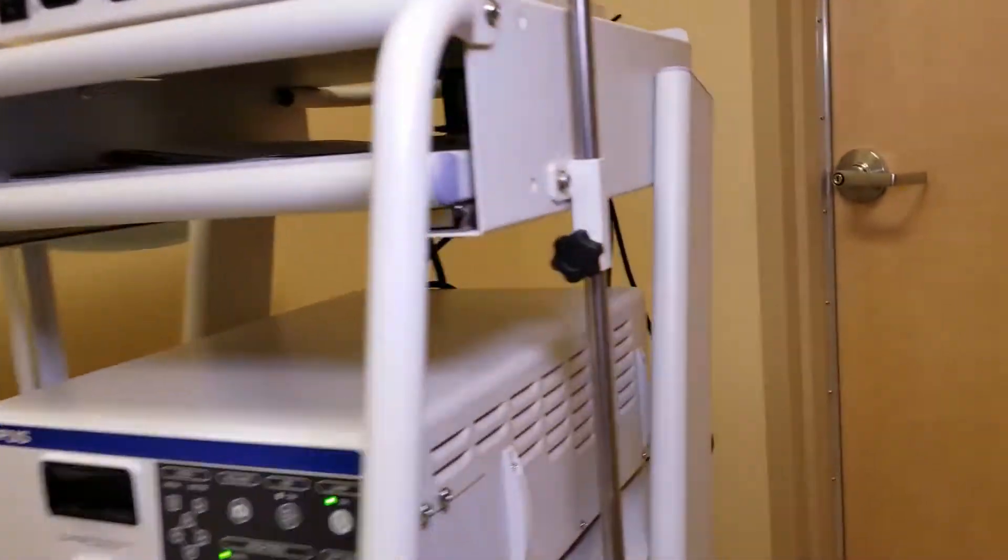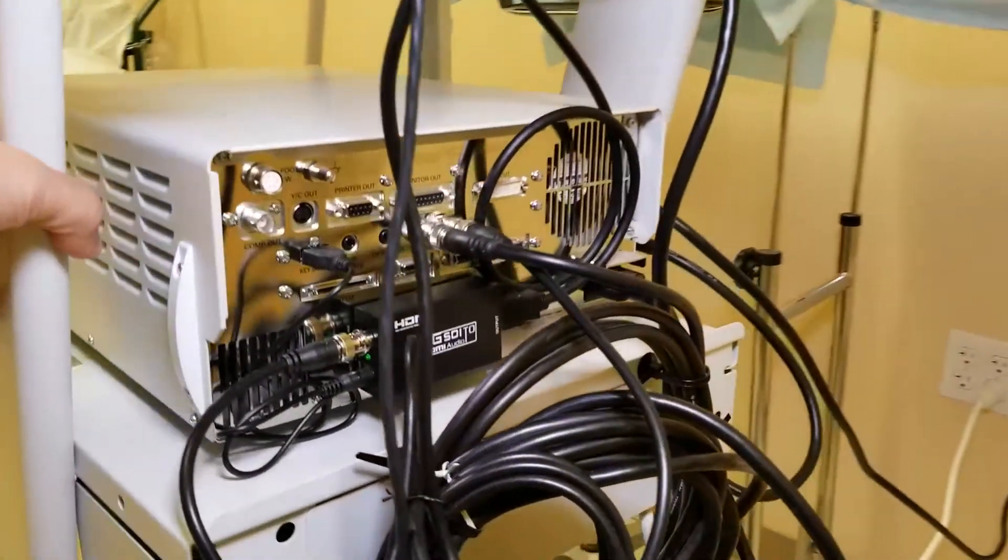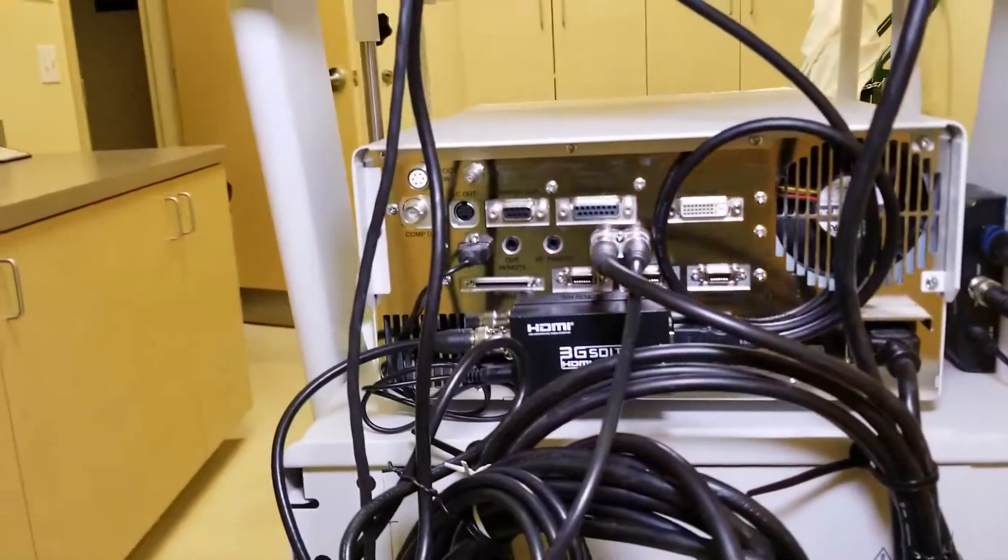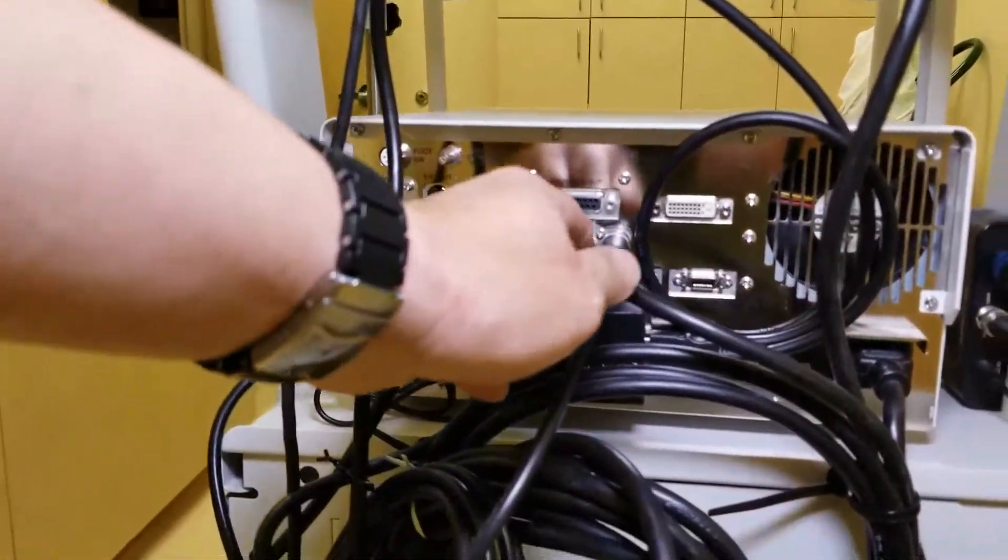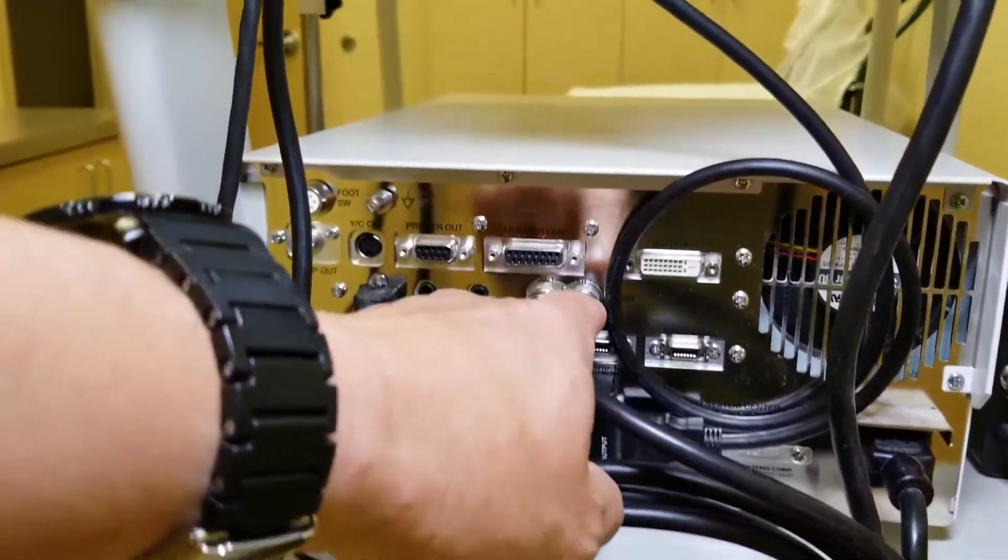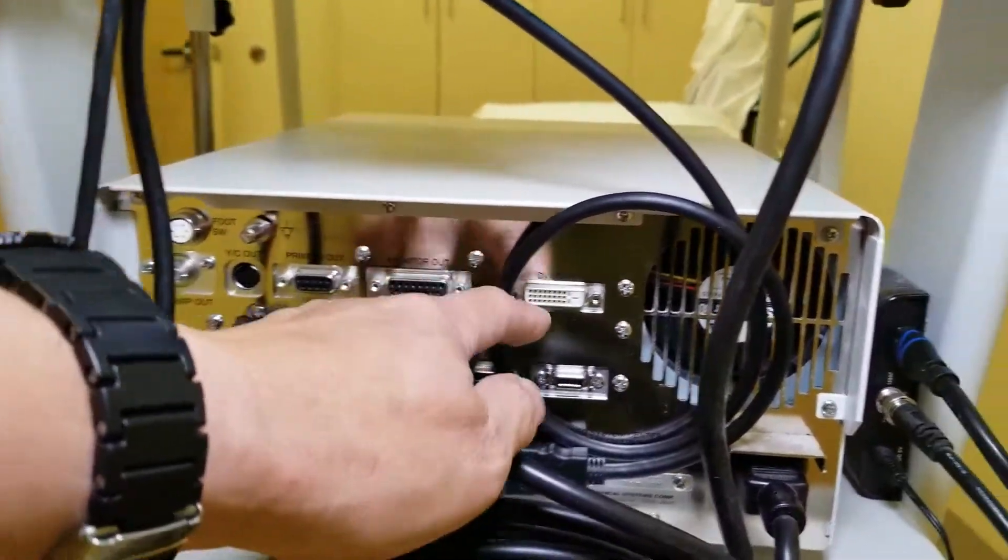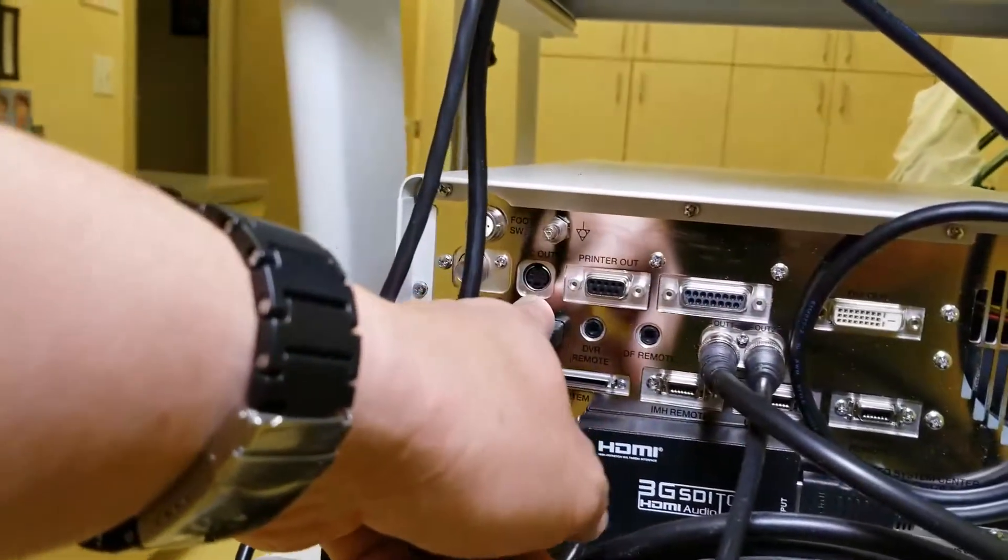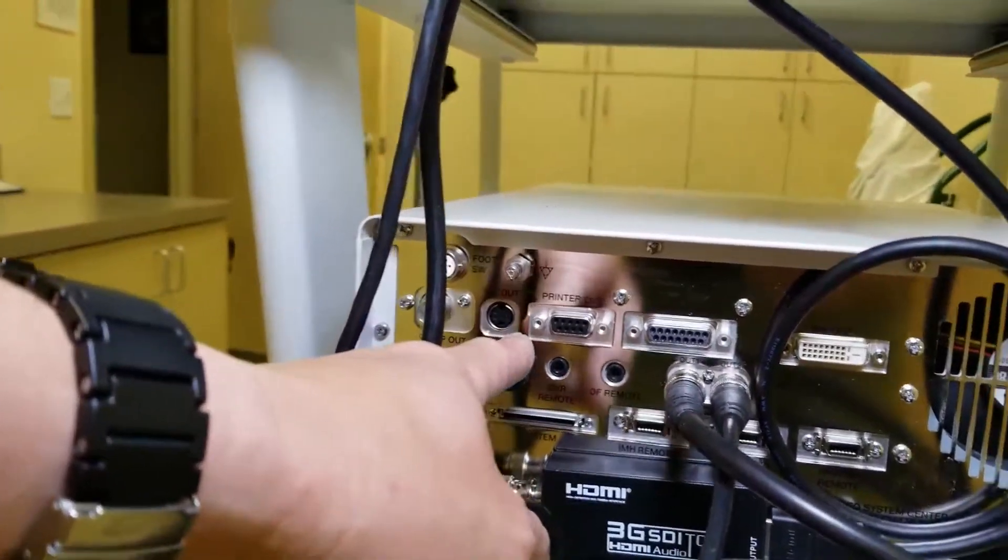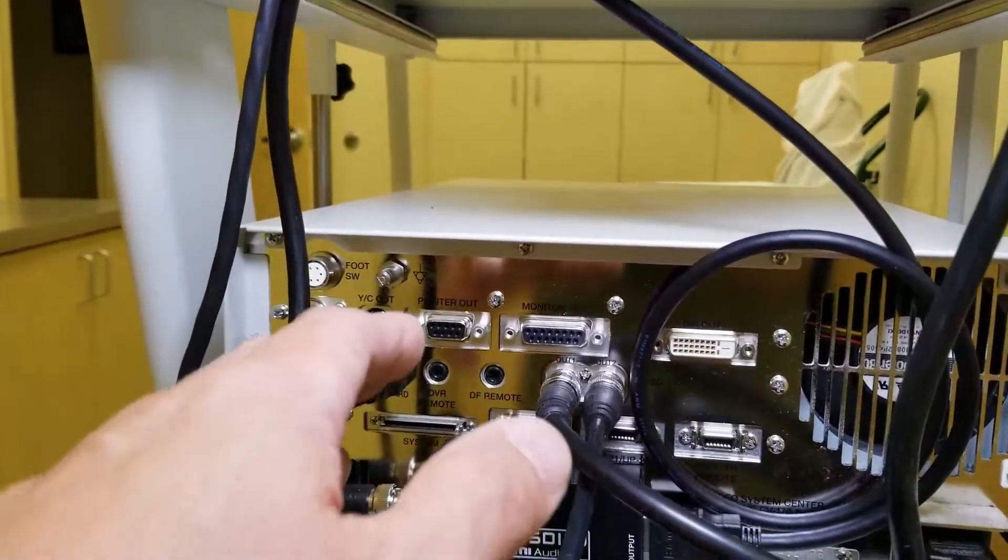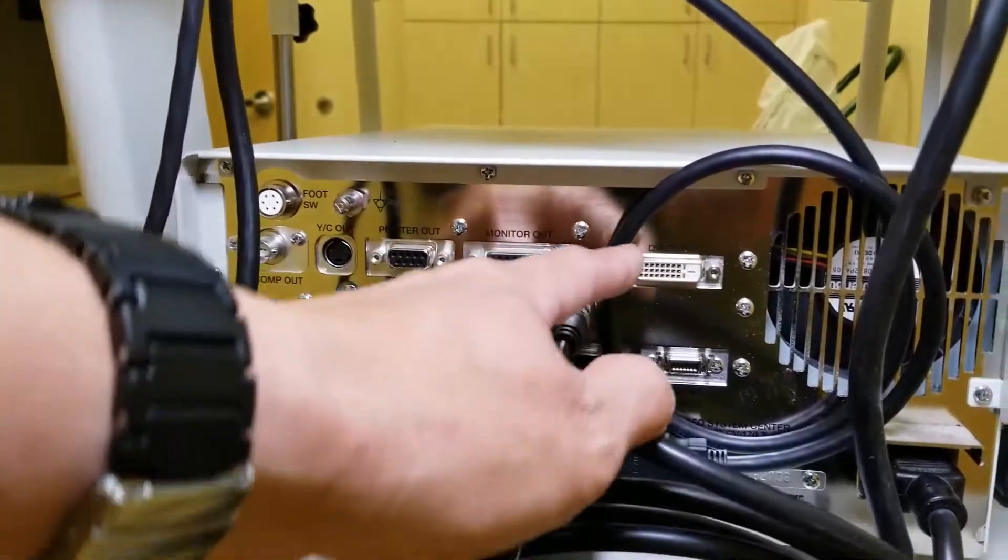On the CV-170, if you go to the back, you will see multiple outputs. Two are called SDI, then you have DVI over here, and another older video output connector. It's going to be very difficult to find monitors nowadays with that type of output.